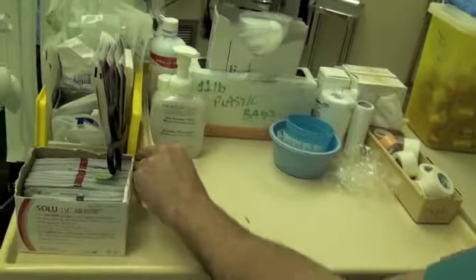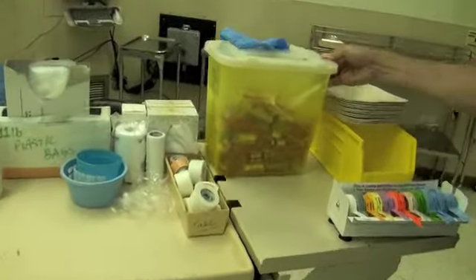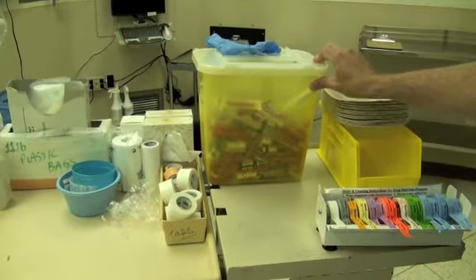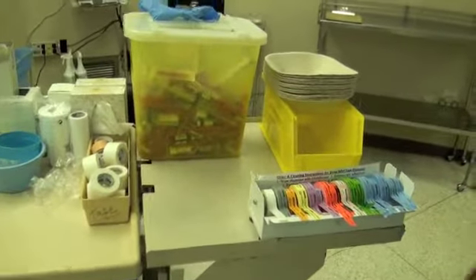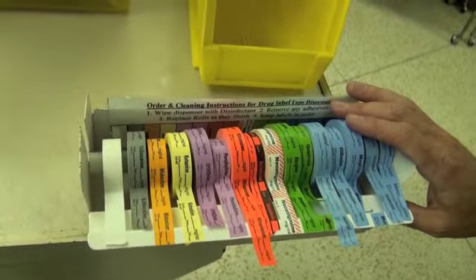Be very cognizant of that for patients that we have that are latex allergic. On the right side of the cart, we have a sharps container, and one central theme in anesthesia is to never use sharps more than you need to, and always dispose of your sharps, and that's what that container is for.